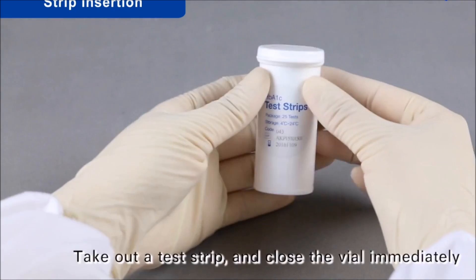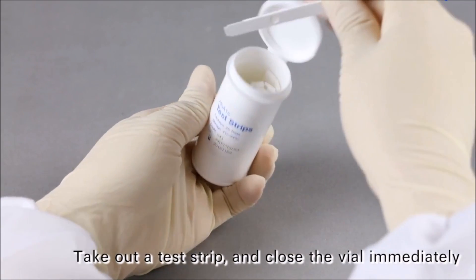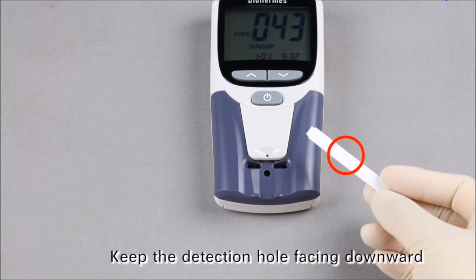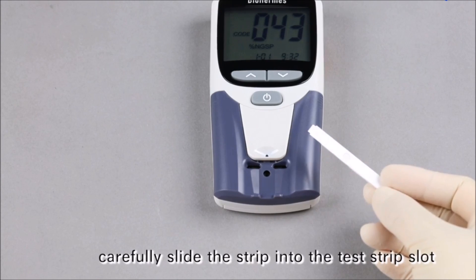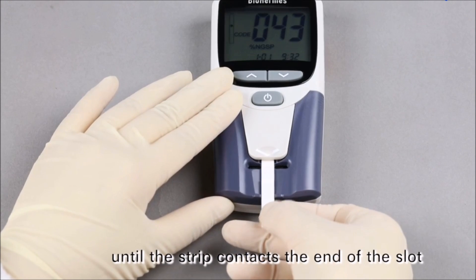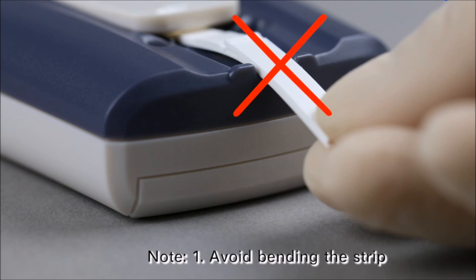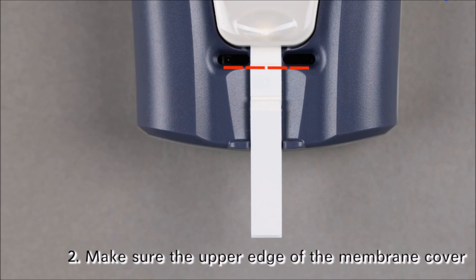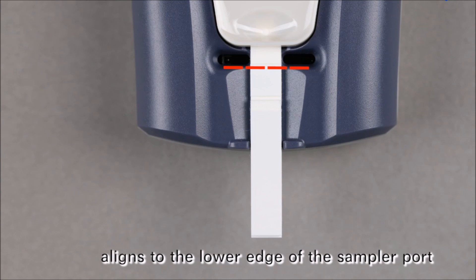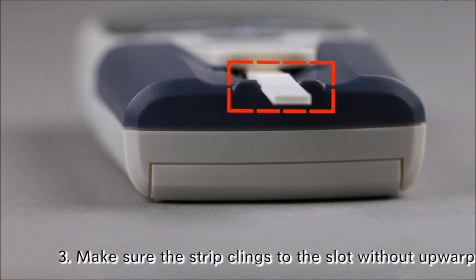Strip Insertion: Take out a test strip and close the vial immediately. Please insert the test strip, keeping the detection hole facing downward. Carefully slide the strip into the test strip slot until the strip contacts the end of the slot. Avoid bending the strip. Make sure the upper edge of the membrane cover aligns to the lower edge of the sampler port. Make sure the strip clings to the slot without upwarp.